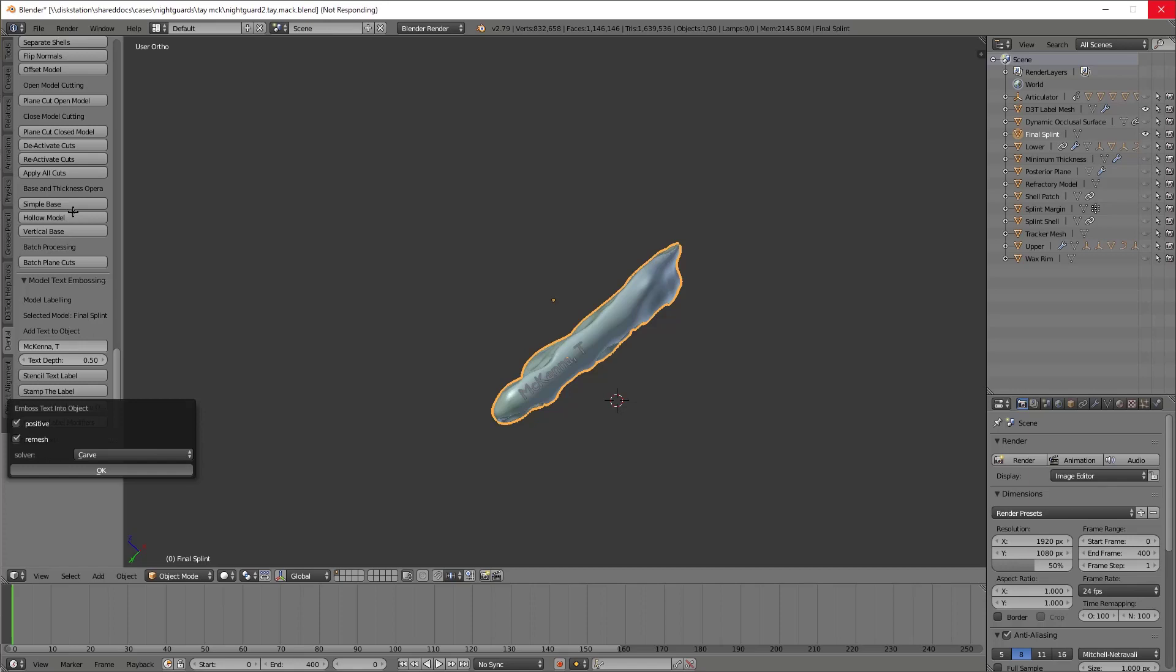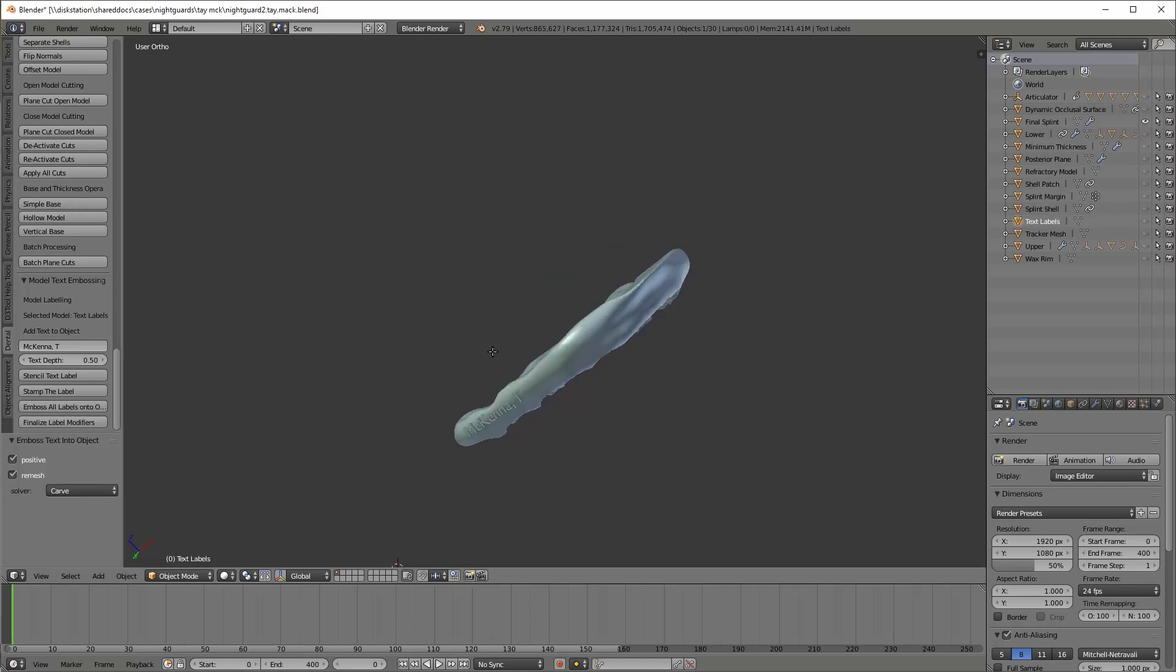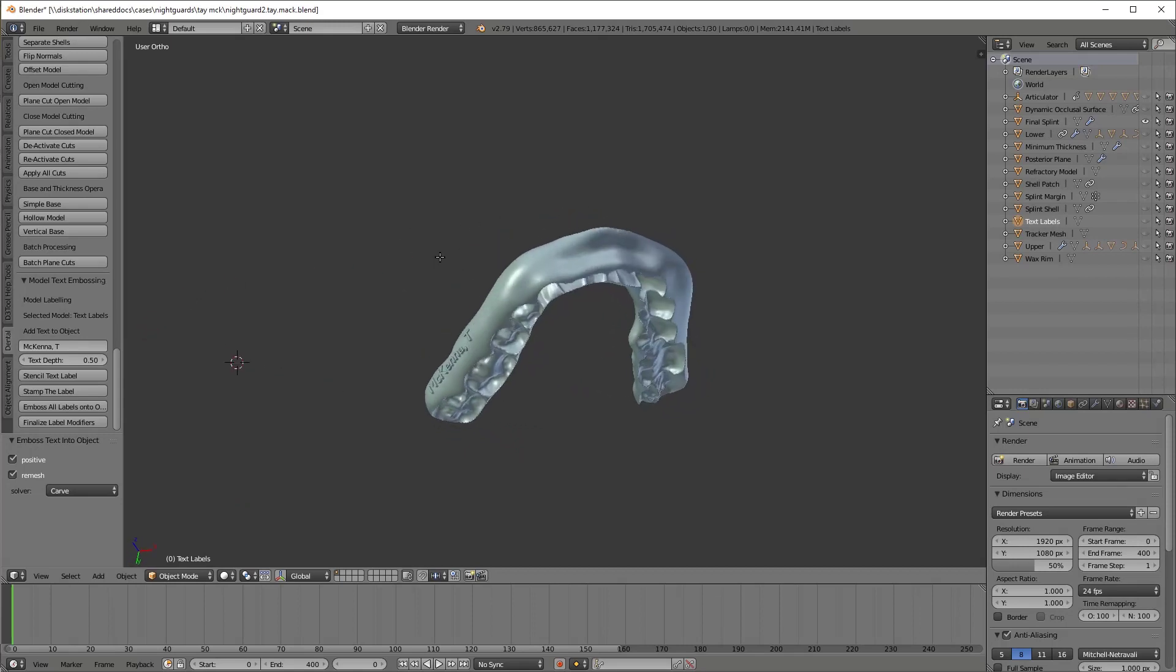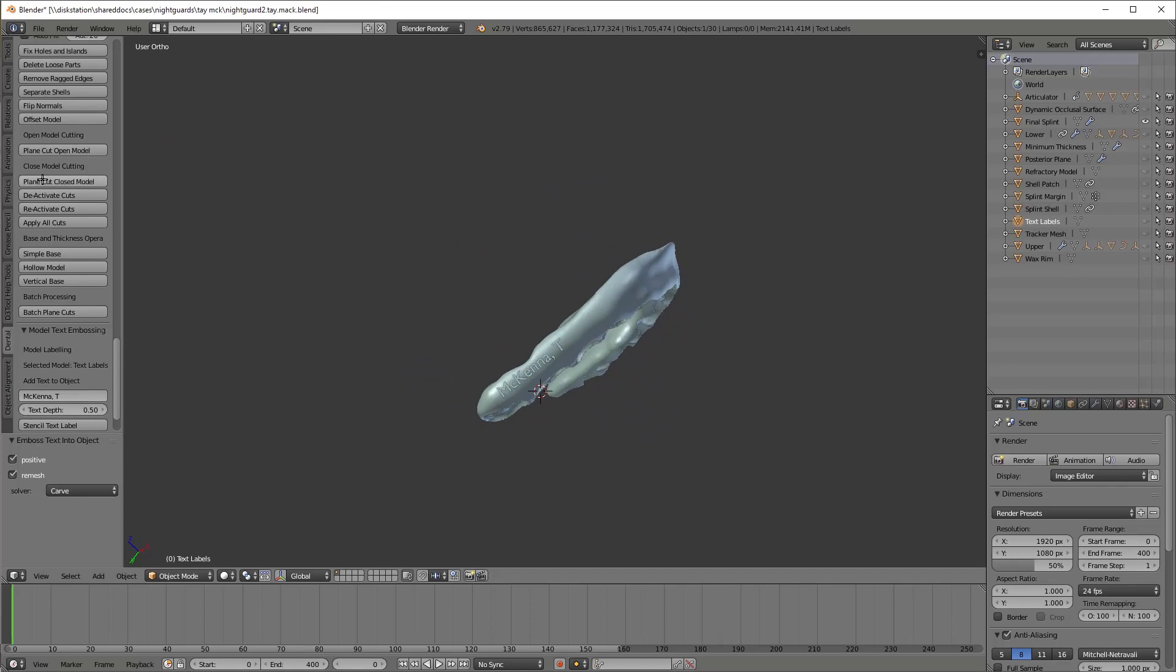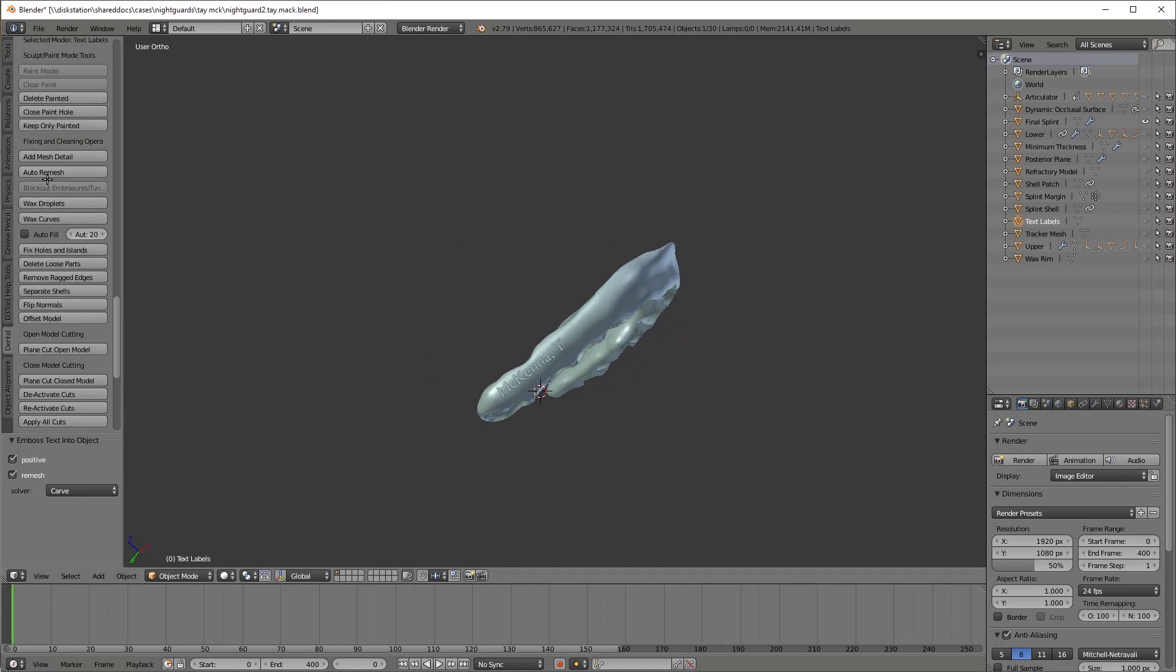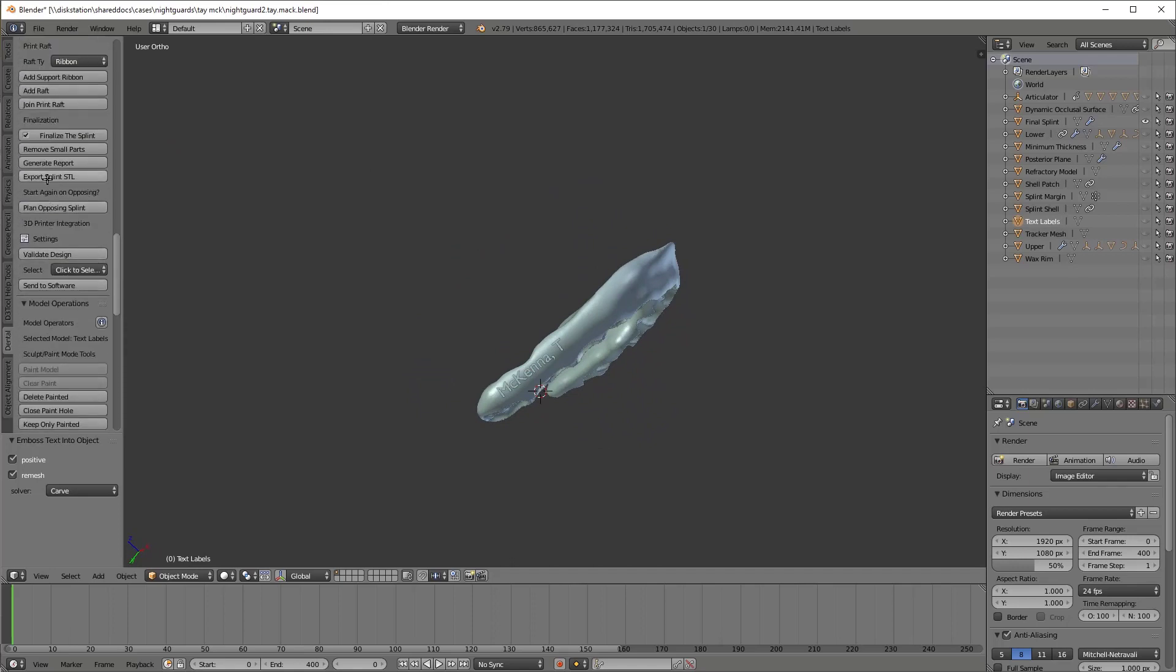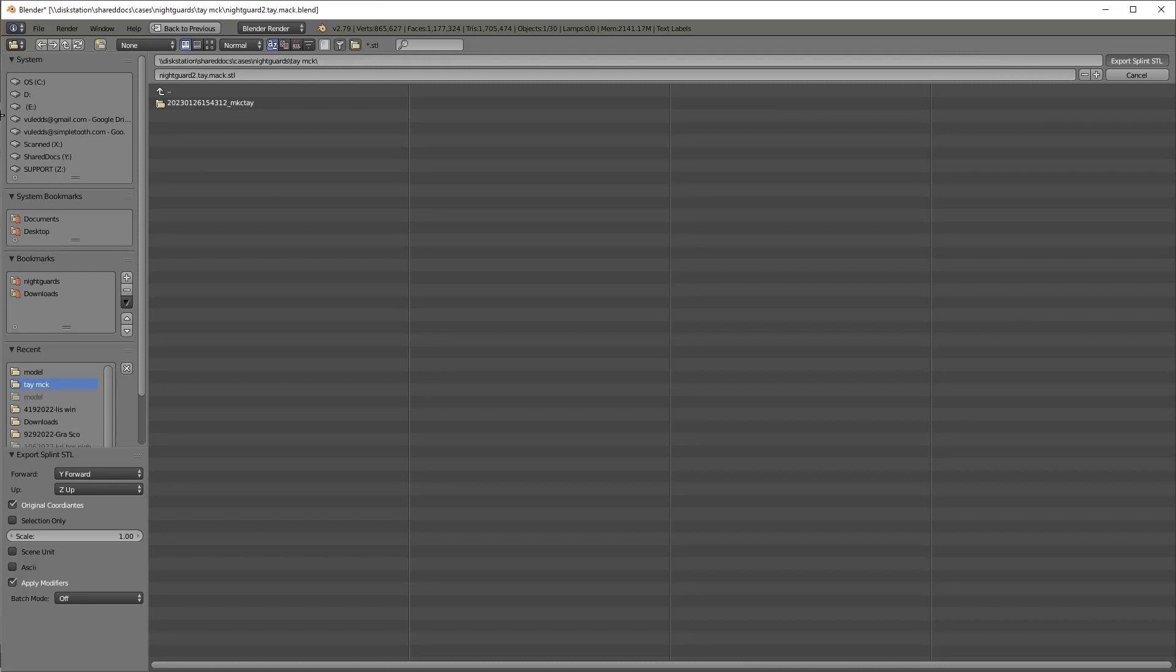If you're keeping track on your watch, this total workflow took me roughly six minutes if we deleted out the bloopers there. So for me, it's anywhere between five to ten minutes for a night guard design, typically closer to five. For my team members, it seems to be that when they first start, it takes them 30 minutes. And then as they get more practice and proficiency, they get it down to about 10 to 15. So that gives you an idea of the time involved.